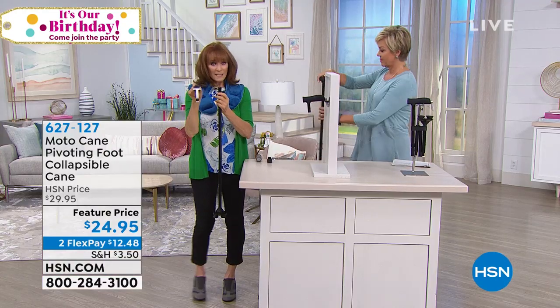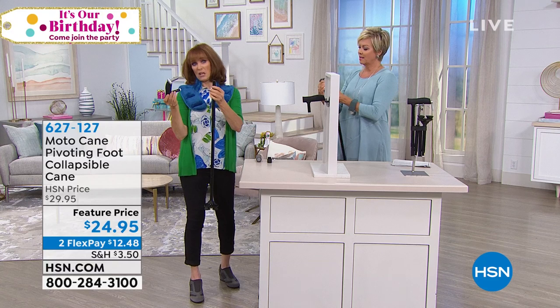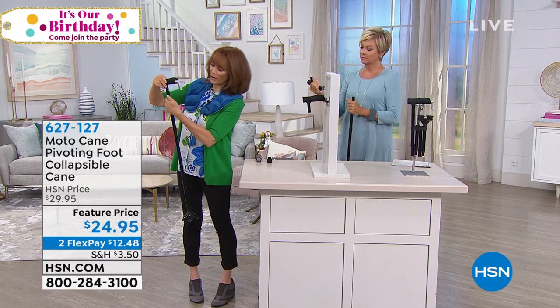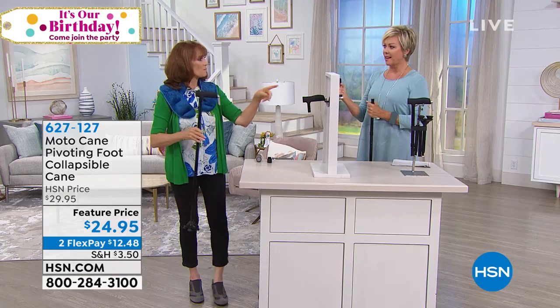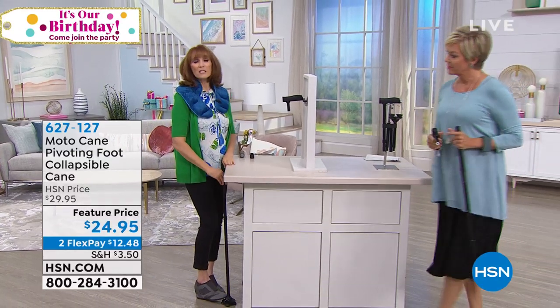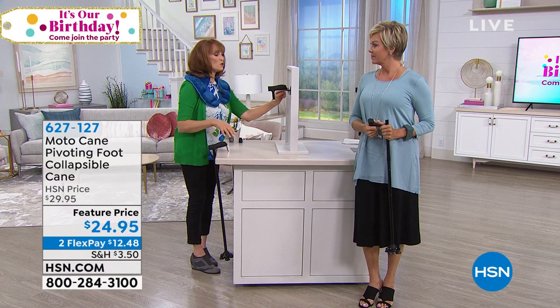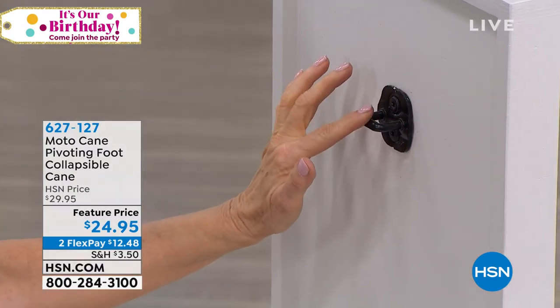Right here is a little button that releases the top to become a car assist. In the past, a car assist alone could be around $20 and a cane another $30. But this car assist attaches on here, and then you can put it back. Now what does a car assist do? Come over to the striker plate right here — every car has a striker plate; it's what's in your car door.